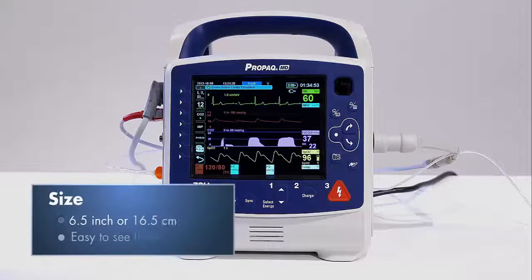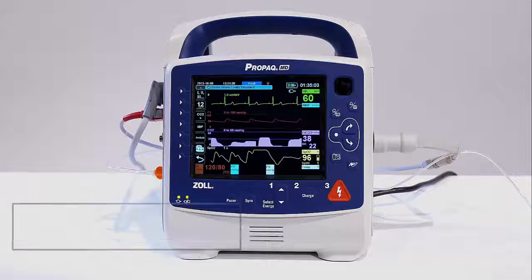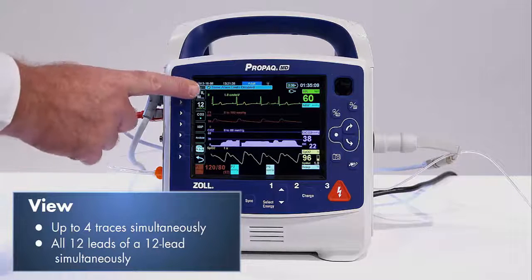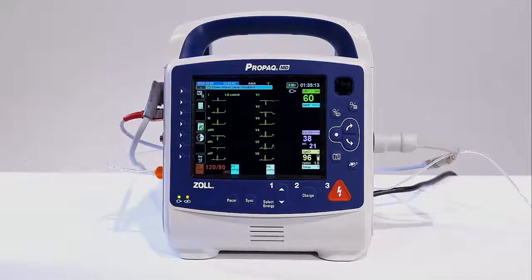The large 6.5-inch or 16.5 centimeter screen is very easy to view in a variety of environments and from quite a distance. It can simultaneously display up to 4 physiological waveforms or all 12 leads of a 12-lead ECG. And the numerics are very large.